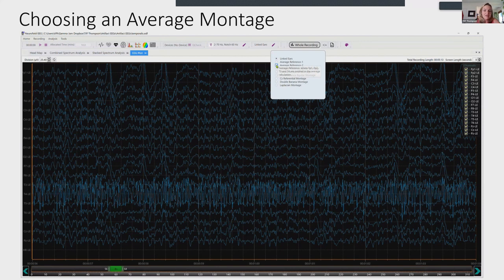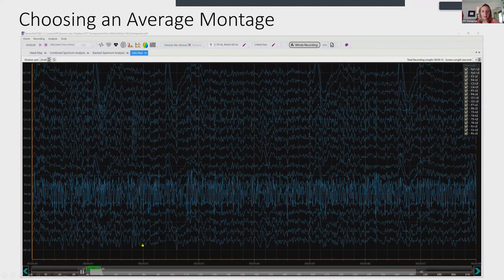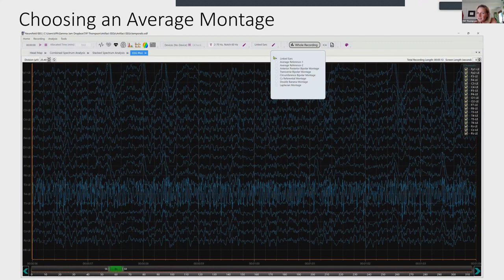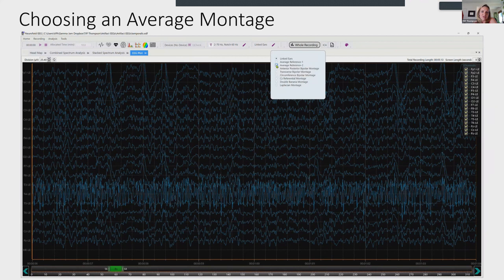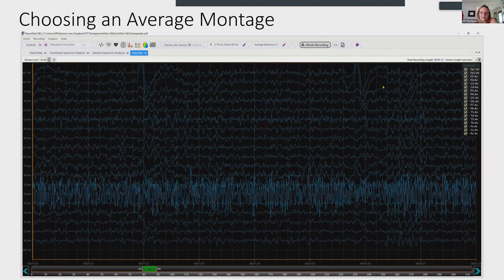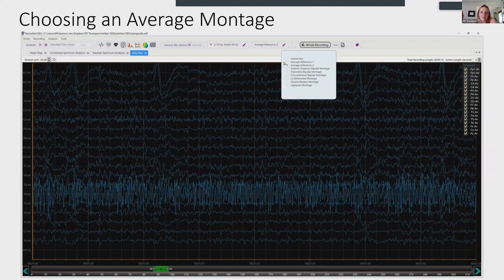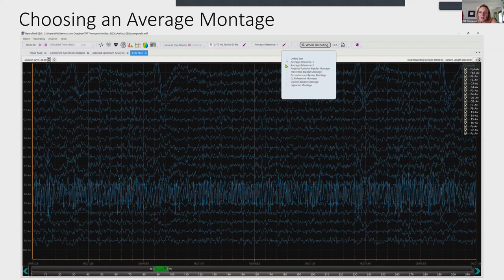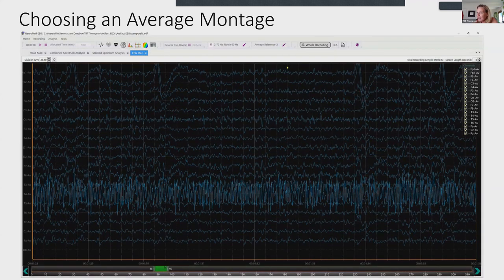The 'tall man' in the EEG: if one electrode has a great big outlier signal, it affects the average and gets subtracted from every active electrode. In NeuroField software you can choose between Average 1 and Average 2 — Average 2 omits FP1, FP2, T3, and T4 from the average calculation. When there's a big temporalis muscle contamination at T4, you should choose the average that omits the temporals from the reference, and you no longer see beta everywhere contaminating the overall average.